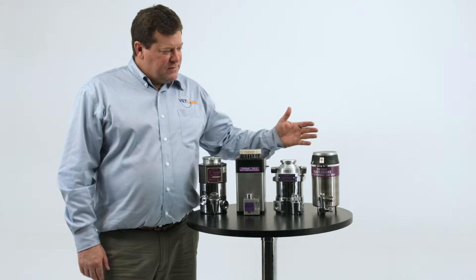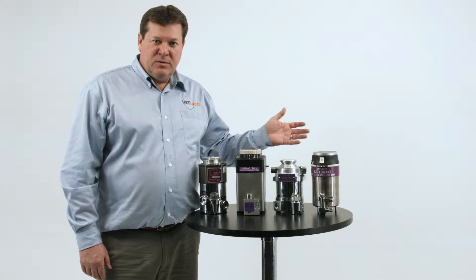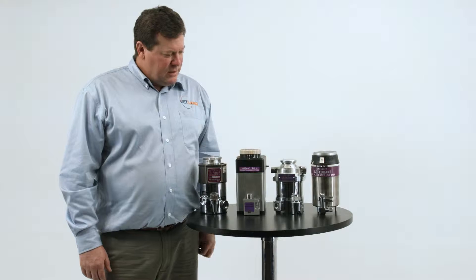In this video, we're going to discuss the various vaporizers that are available through Vetland Medical to mount on our anesthesia machines.